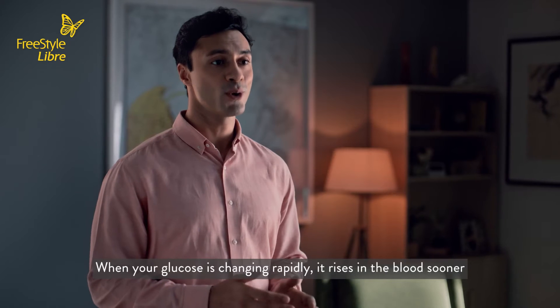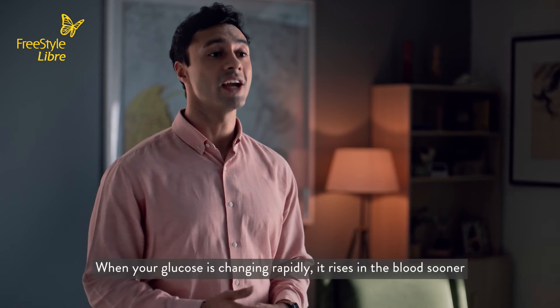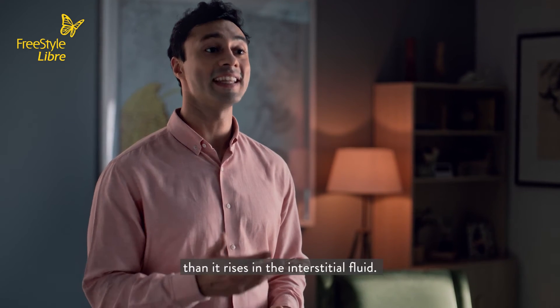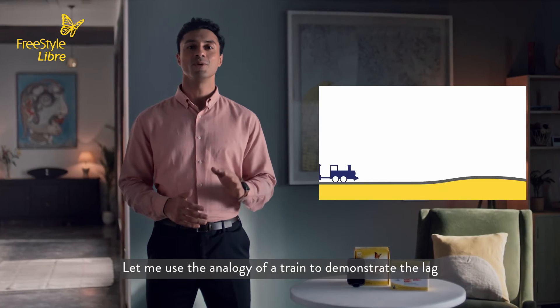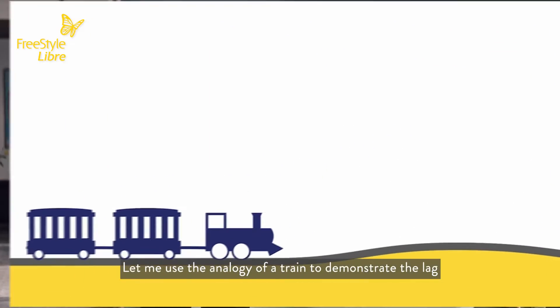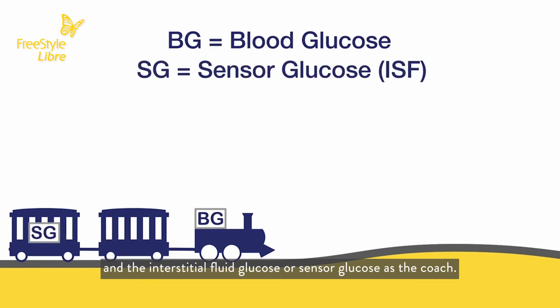When your glucose is changing rapidly, it rises in the blood sooner than it rises in the interstitial fluid. Let me use the analogy of a train to demonstrate the lag. Think of blood glucose as the engine on the train and the interstitial fluid glucose, or sensor glucose, as the coach.